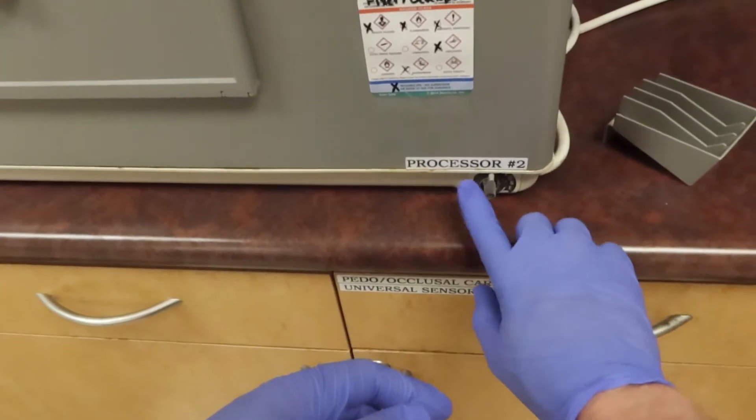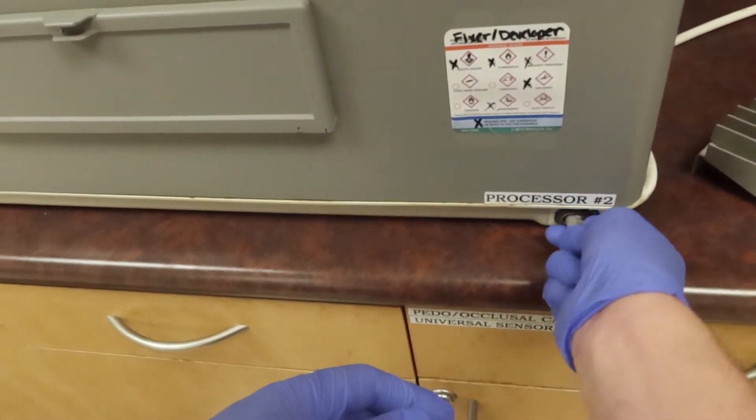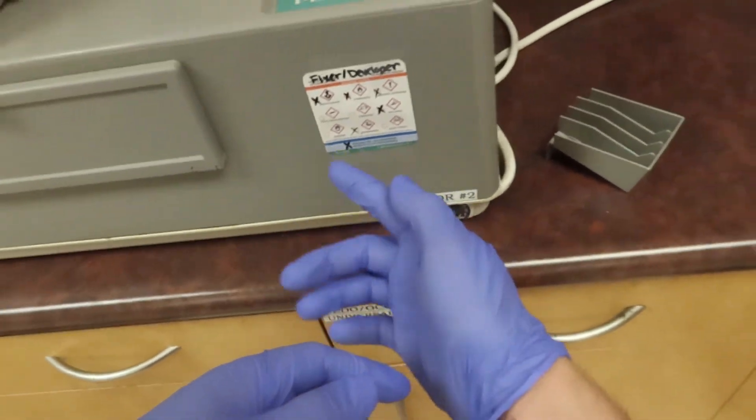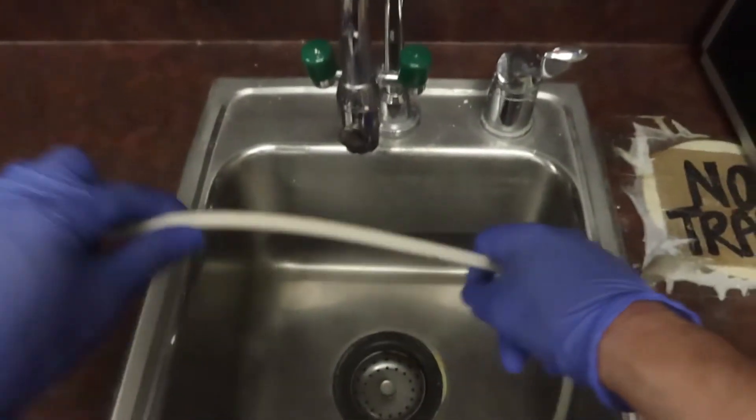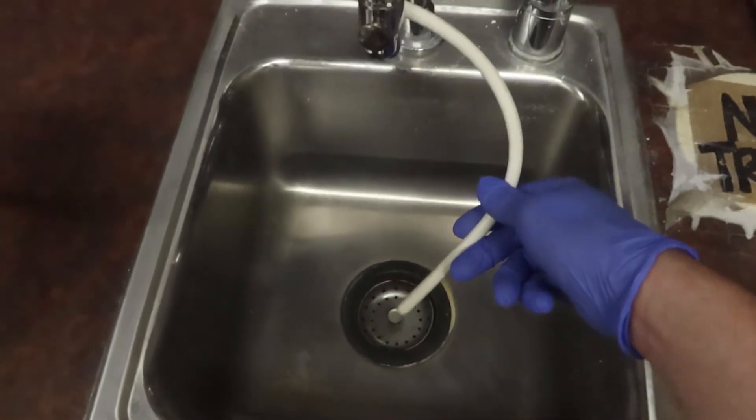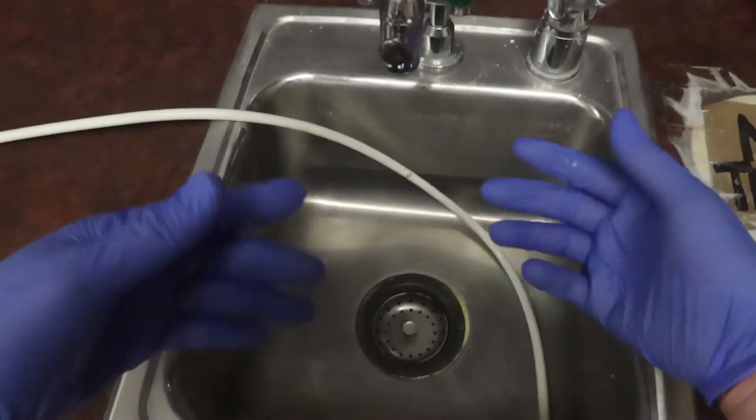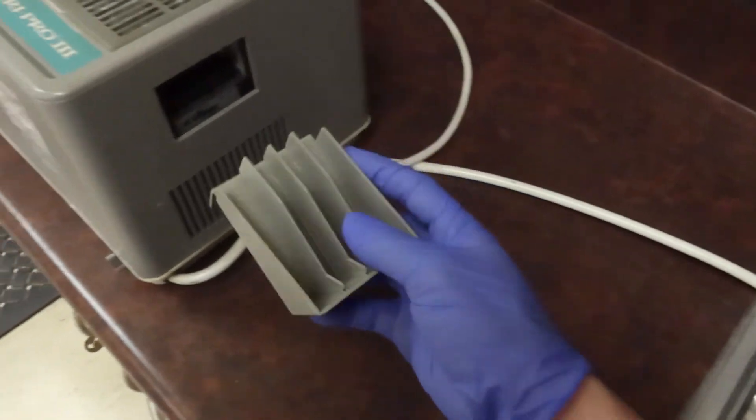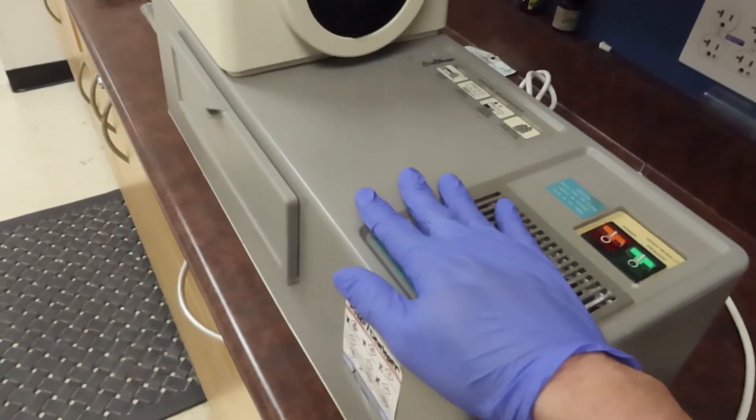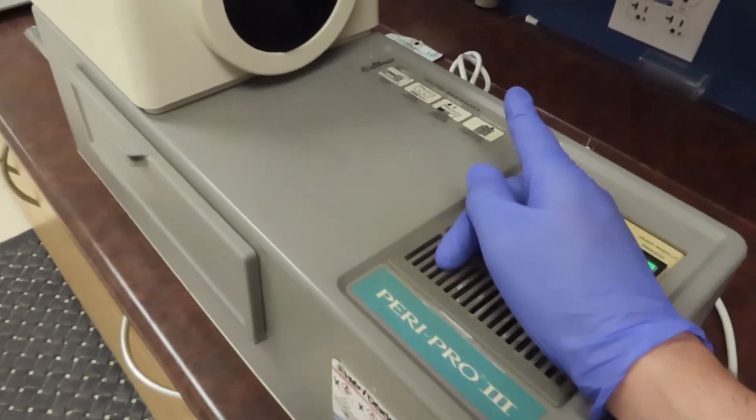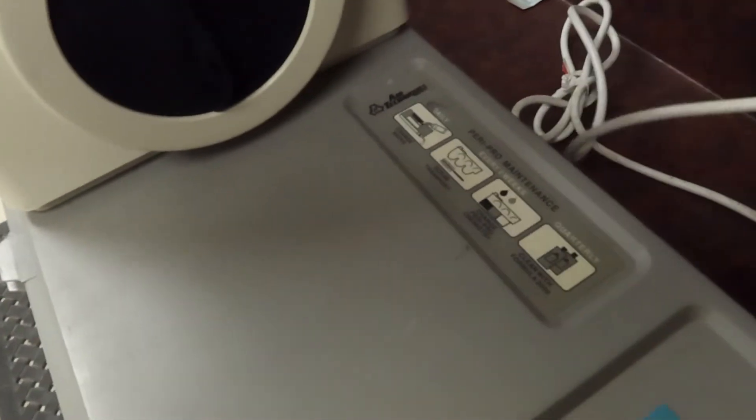If I put it into an open or closed fashion, it's going to leak out all that water to this tube, which I have over here going right into the sink. Make sure this is in the sink whenever you're going to drain it. This is our little rack - it just slips right in there. Of course, we're going to need to power this baby, so let's plug that in and listen to that baby purr.